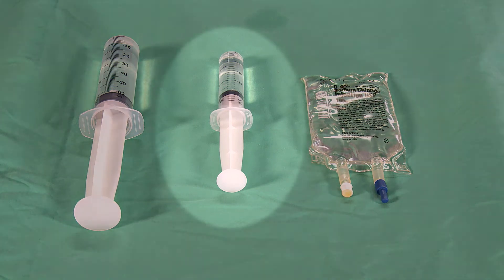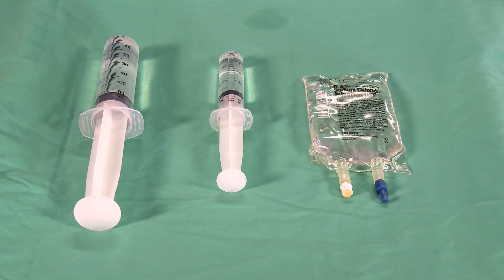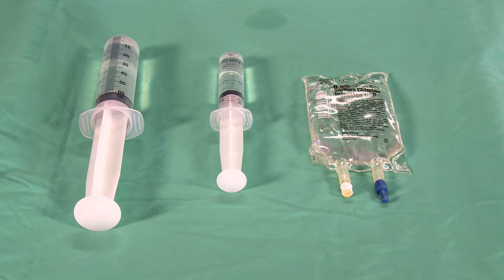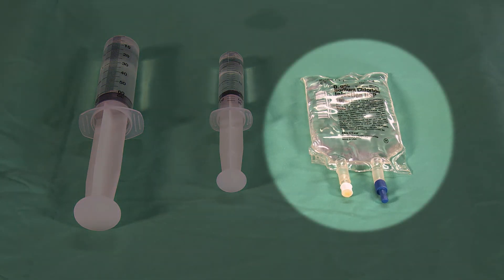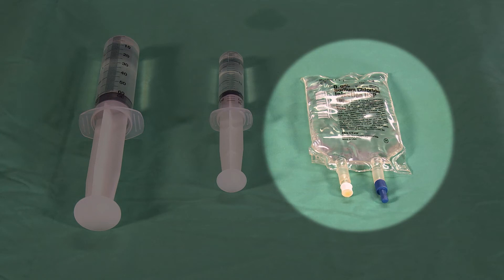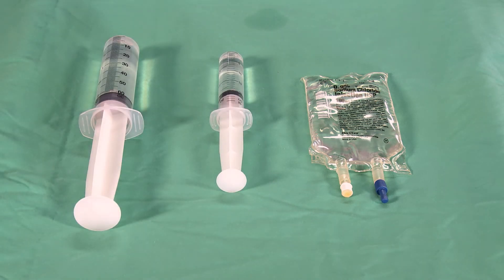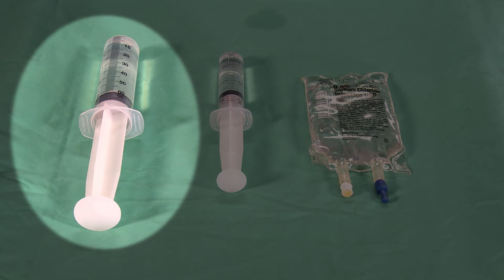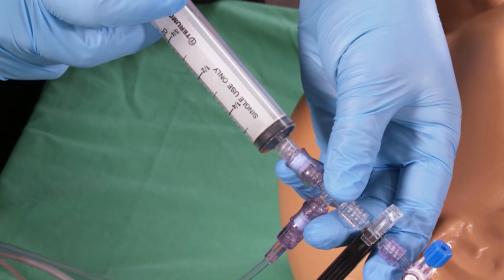TPTD syringe boluses are usually 15 or 20 milliliter volumes of sodium chloride. Syringes can be prepared and placed in an ice bath or refrigerated at a recommended minimum temperature of 15 degrees Celsius while maintaining sterility of the bolus. As an alternative, a small 100 milliliter sodium chloride bag can be kept in refrigeration at a minimum temperature of 15 degrees Celsius, from which 3 to 5 individual 15 or 20 milliliter syringes can be prepared for the TPTD measurement. Additionally, one 60 milliliter syringe may also be used, injecting only 15 or 20 milliliter boluses at a time. Connect the TPTD syringe directly to the free port of the thermistor manifold when delivering the bolus.